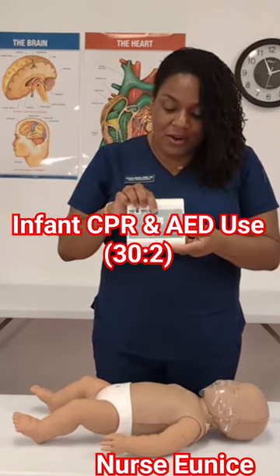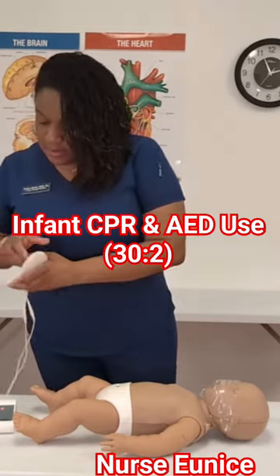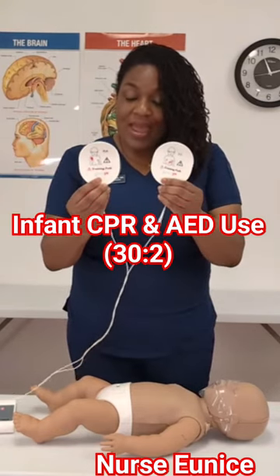If you are recording a previous video, we are going to power the AED on. Apply pads to the patient's bare chest — we're going to listen to the prompts. Next to the flashing light, we have the pads.